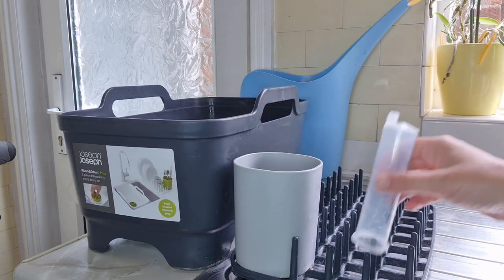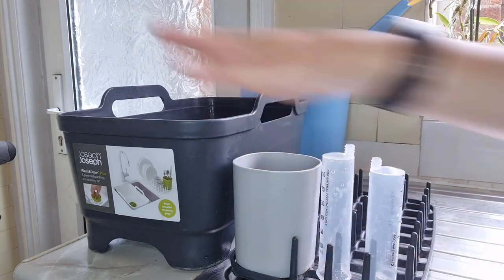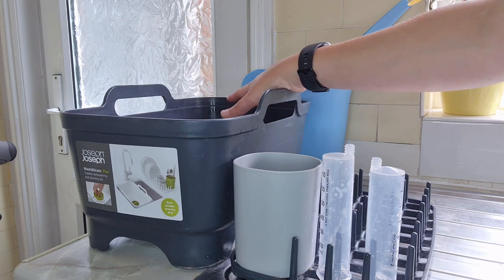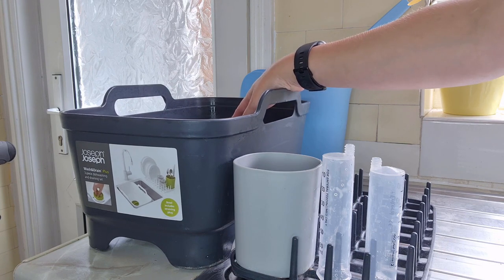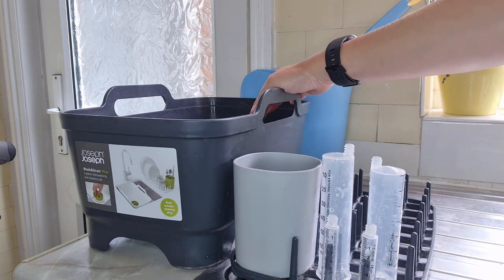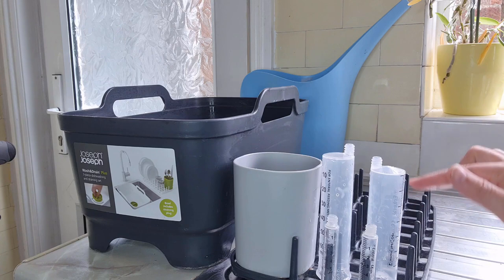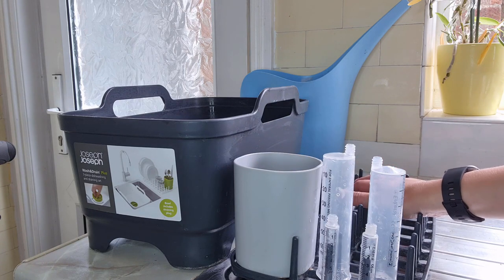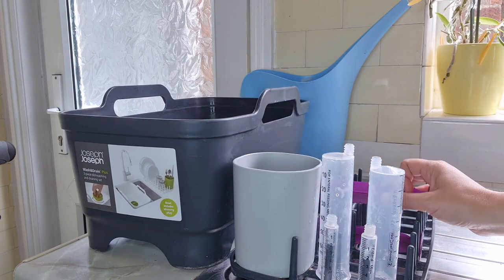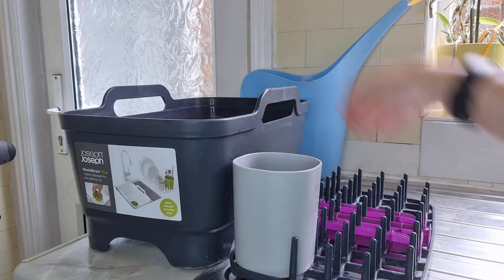Some people actually prefer to put the syringes on a rack. This rack came with a Joseph and Joseph set — I know some people are going to laugh if they've seen my other videos, because I'm pretty obsessed with this brand. You can put the syringes on it like this. Lakeland also do one of these with much taller poky bits — that's the technical term — which is really good for drying syringes.